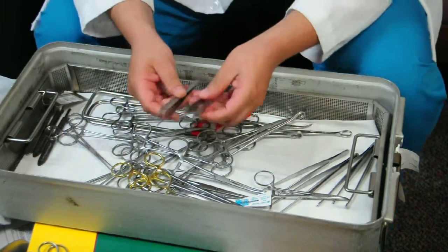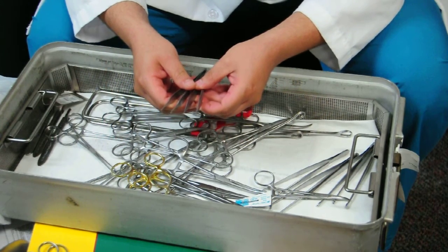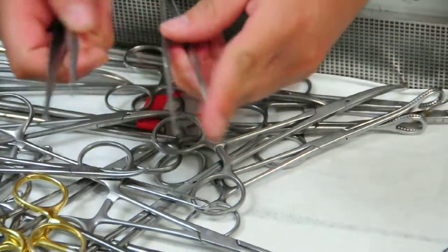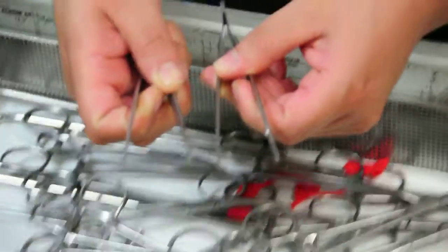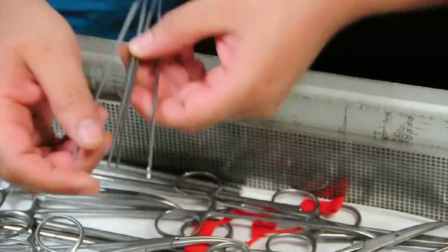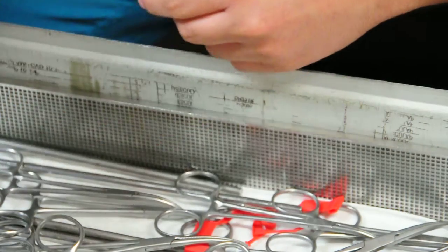Let's discuss pickups. These are Adson pickups — they have teeth at the end and are used to grab Scarpa's fascia, fat, and skin when you're closing. These are rat tooth pickups, also with teeth, and they're used to close fascia during a C-section or GYN surgery. You can also use Bonney forceps, which are similar to rat tooth except they have a little area for picking up the needle.